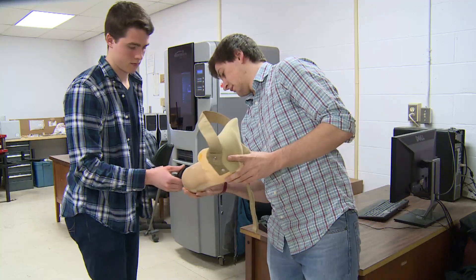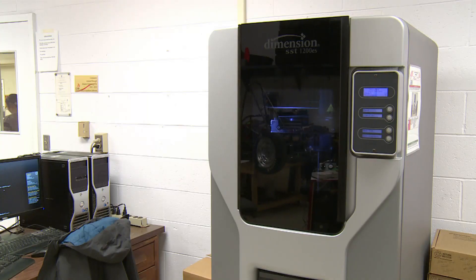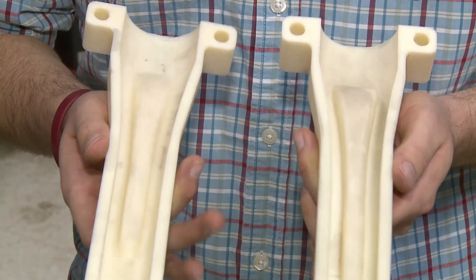Students Trevor Scott and Lucas Pupek feel they've made big progress this year. Thanks to this 3D printer, they can now make moulds in a fraction of the time that it used to take. With this, it took 34 hours to print. That sounds like a long time, but in the engineering world, you put it in today and come back the next couple of days and it's done.